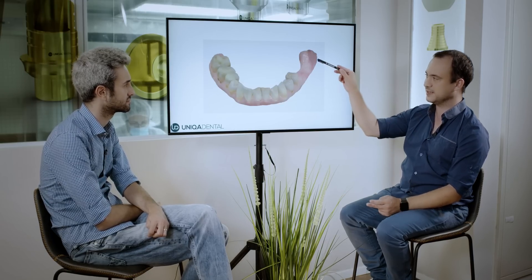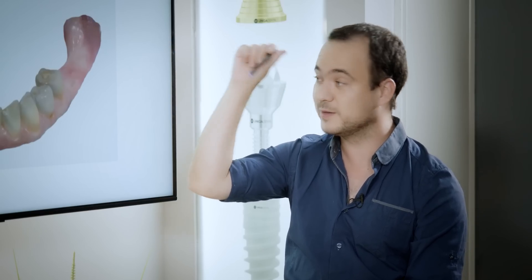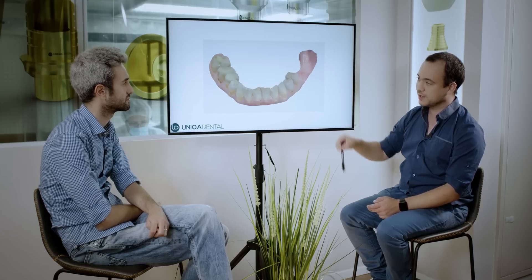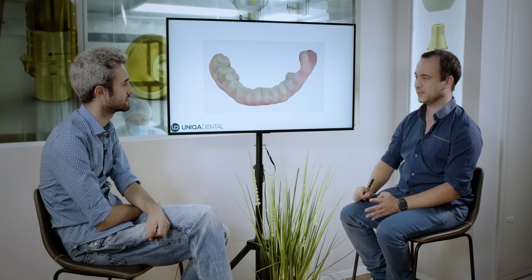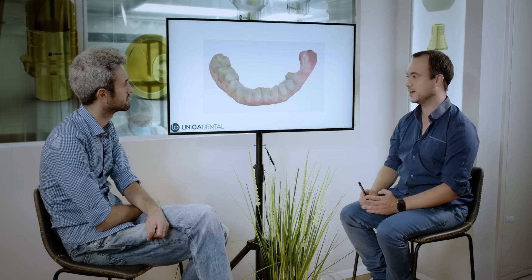In here you can see that I don't have the posterior teeth, and I know that I can move the implant a little bit back or a little bit forward. There is no one single place for the implant — you can play with it a little bit. So in this case, to place the implants correctly, I first need to have some design of the future crowns that I want the patient to have.